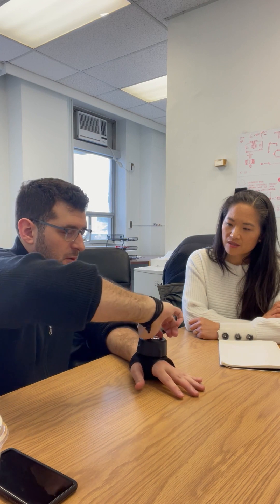There's an important feature here — you have white and red modes. In tremors, you typically have individuals with a lower frequency tremor and individuals with a higher frequency tremor. The white mode targets slower tremors. If you feel you have faster tremors and want to make an adjustment, you just turn the knob and it starts targeting faster tremors. It has a really good targeting range so you'd only have to make the adjustment once in most cases — it's one or the other, simplification was the idea.